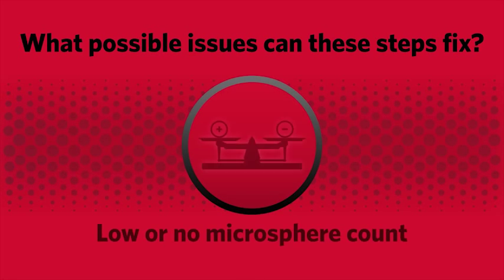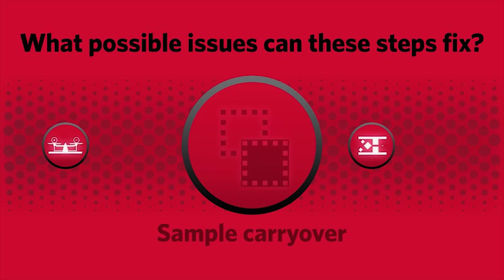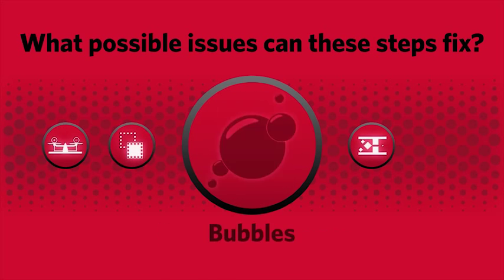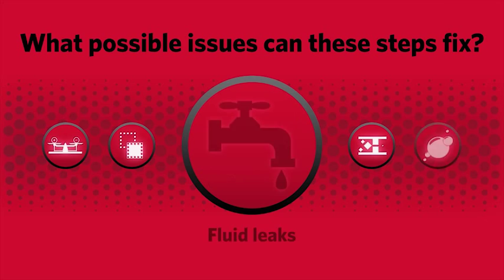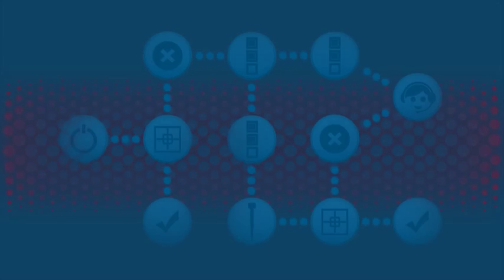These steps will only take a few minutes and can solve issues such as low or no microsphere count, clogs, sample carryover, bubbles in the line, certain fluid leaks, and many other issues you might experience while using the MagPix instrument.